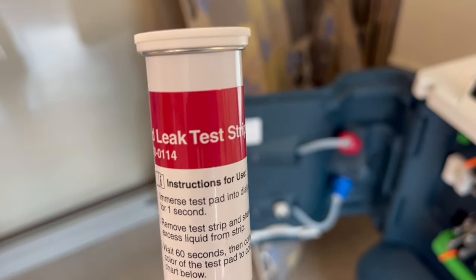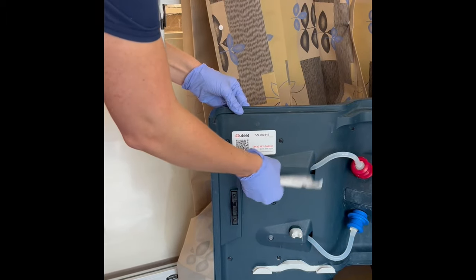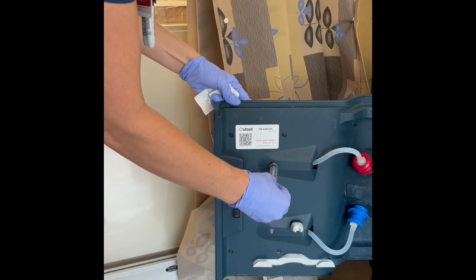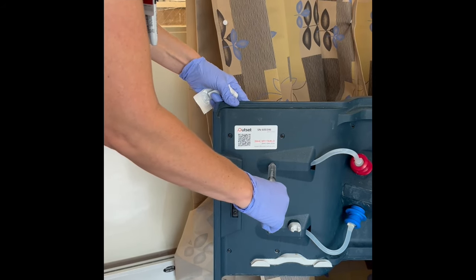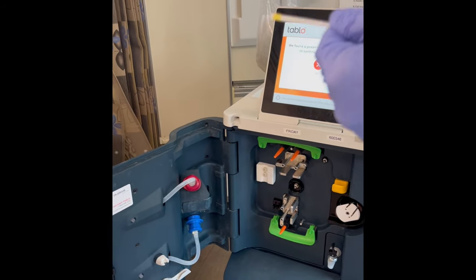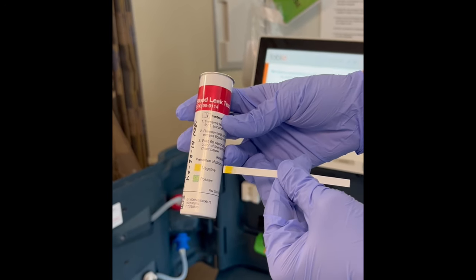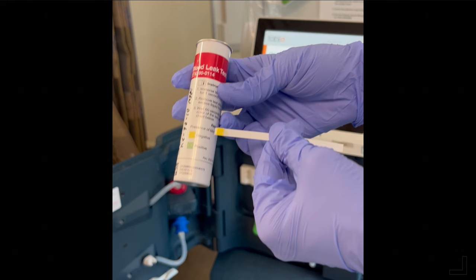In the rare event that the machine asks, you may have to perform a blood leak test. Using a new syringe, remove about 10 ml of water from the door at the top port and place the strip in the water. You will see a negative or positive result. If you get a positive, this means blood is leaking from the machine into the water supply. Treatment must be stopped immediately and the blood cannot be returned — it must be discarded.